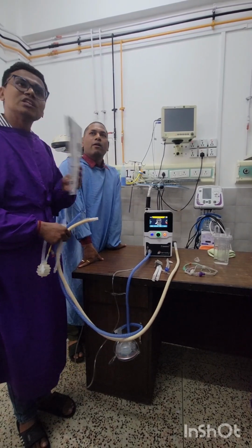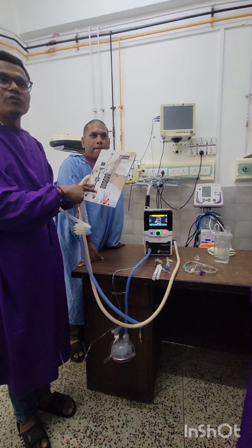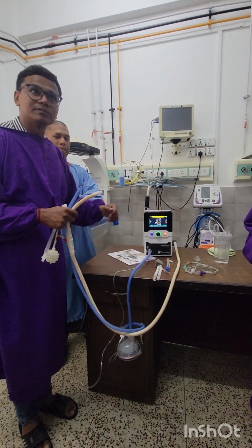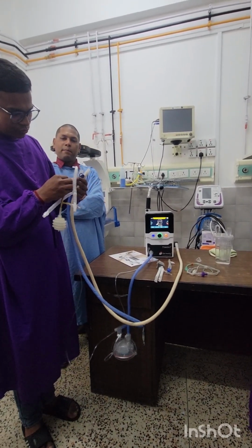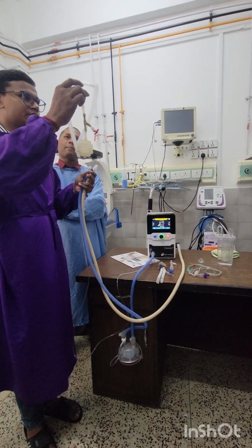It has got all the non-invasive modes currently used worldwide, right? So it has bubble CPAP, high frequency CPAP, nasal CPAP, nIPPV, synchronized nIPPV and HFNC. All the modes in this single device. So I am just showing the circuit, the interface that I am attaching. This is the setup to check how the machine is working on the patient. So I have attached an interface like this.